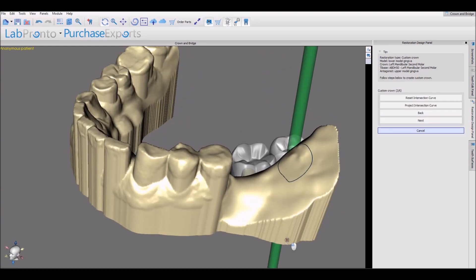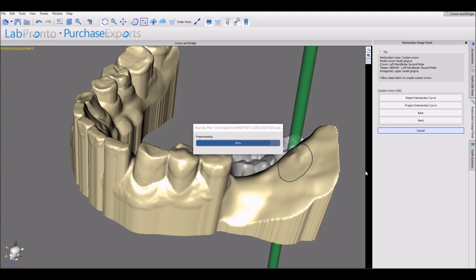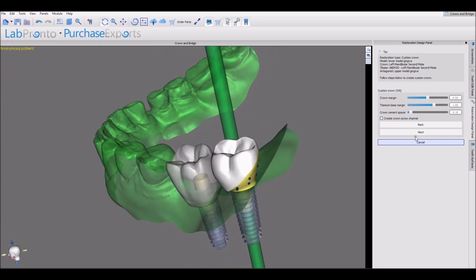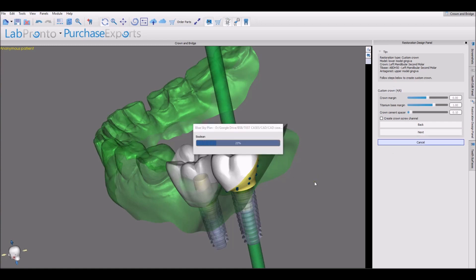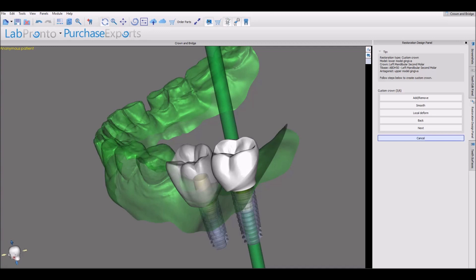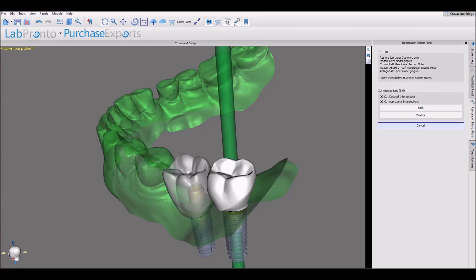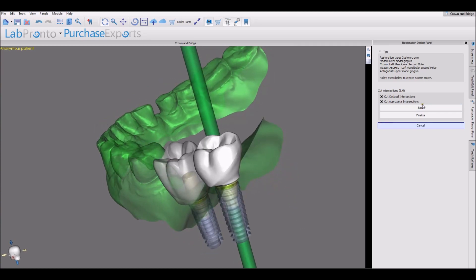Here we have the curve designed by the software. Again, hold down the Shift key, grab and drag to make any modifications to the curve, then press Next. Review and modify as needed the connection of the crown to the titanium base, then press Next. Review the design of the crown, modify as needed using any of the editing tools discussed previously, and press Next. Finally, check any intersections, decide how the software should deal with them, or press Back and edit yourself, then click Finalize.